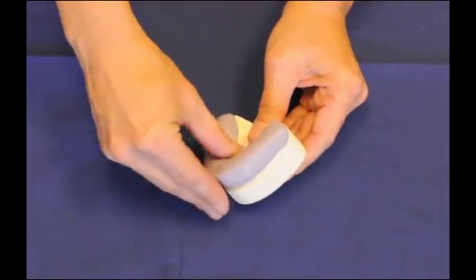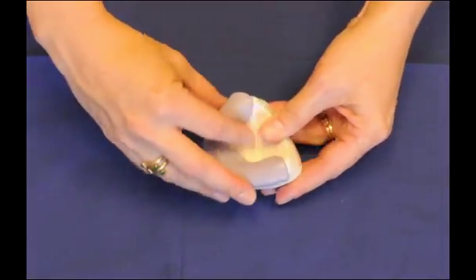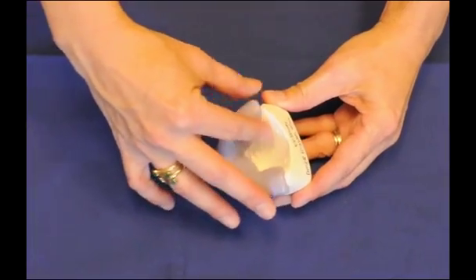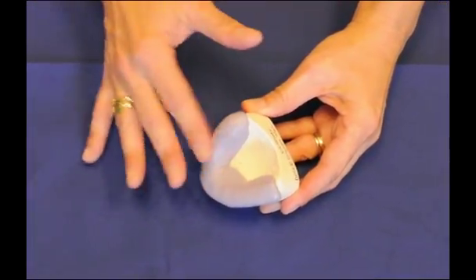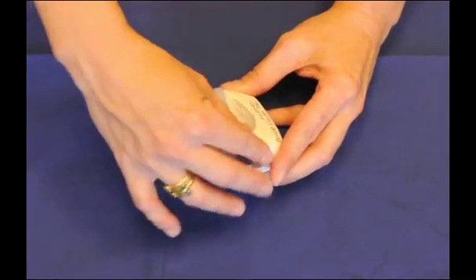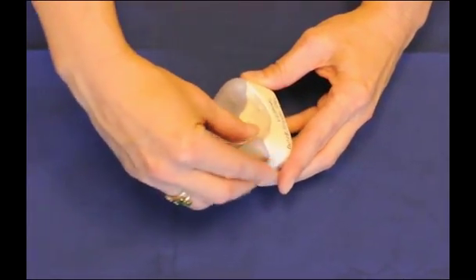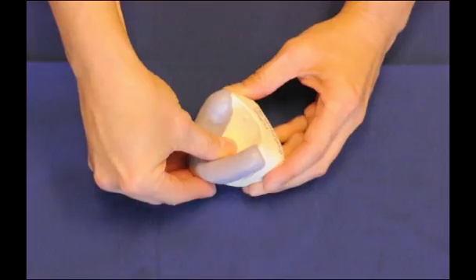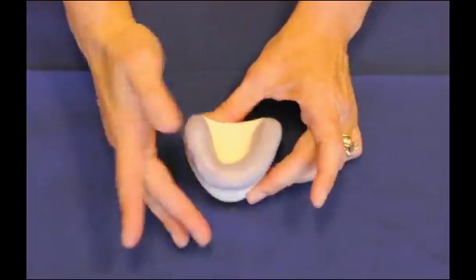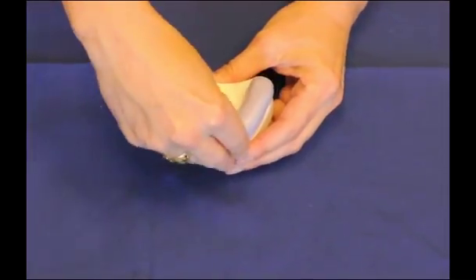I also want to make sure that I'm going to get it into a shape that's comfortable to go into the patient's mouth, easy to get underneath their lips, so I'm going to take time to make sure I form it on the buccal specifically, and also that I make it easy for me or my assistant to work with. So I want to make sure that I have a very flat surface on the occlusal tables.